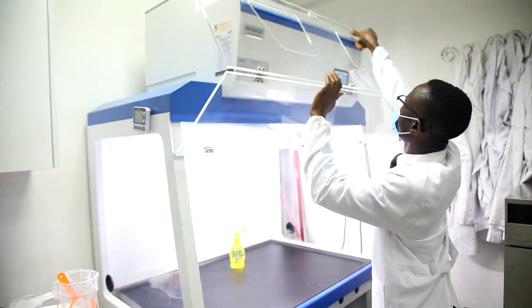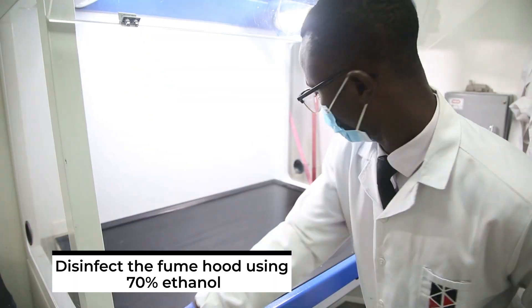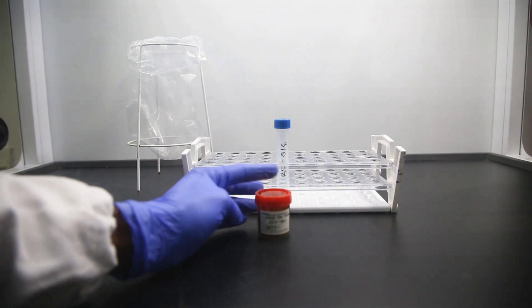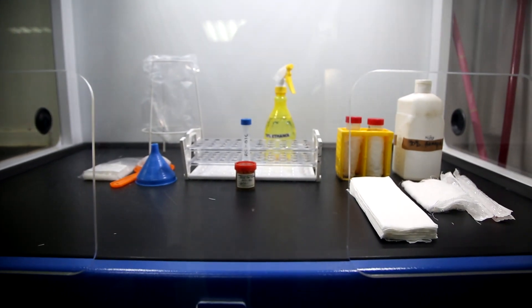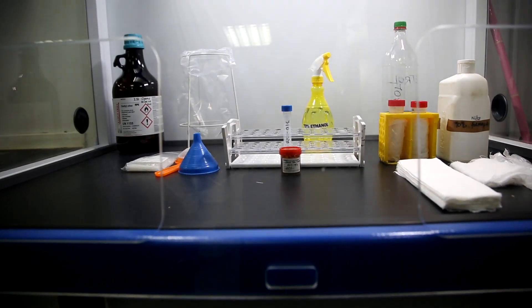We are using the fume hood because we will be working with diethyl ether and formalin. The next step is to disinfect the fume hood using 70% ethanol. Then you arrange all the materials that are needed. The materials needed include the stool sample, 10% formalin, a 15 ml falcon tube, and the lid.